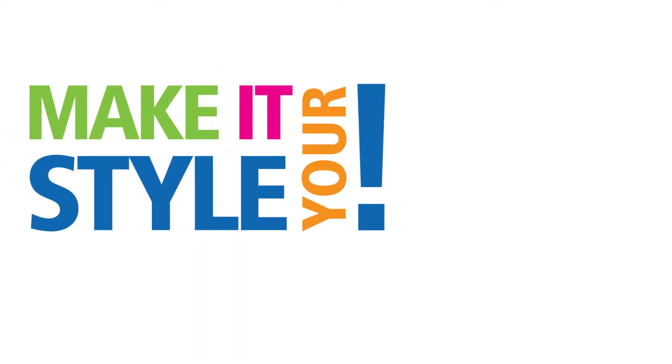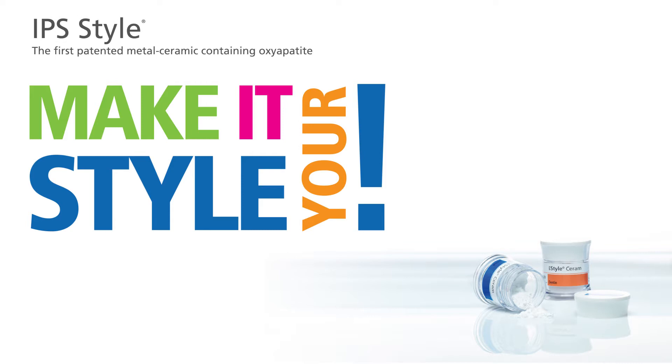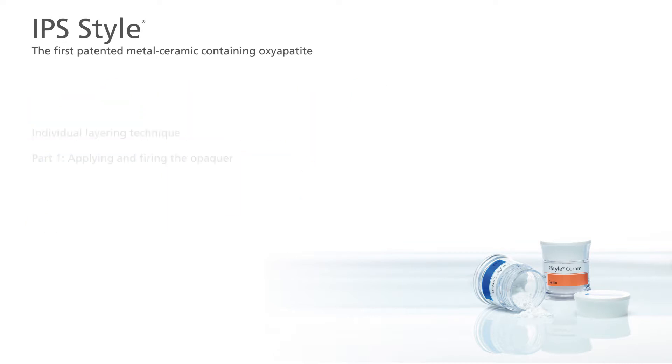This video tutorial shows you how a bridge framework is veneered with the help of the metal ceramic material called IPS Style. Part 1: Applying and firing the opaquer.